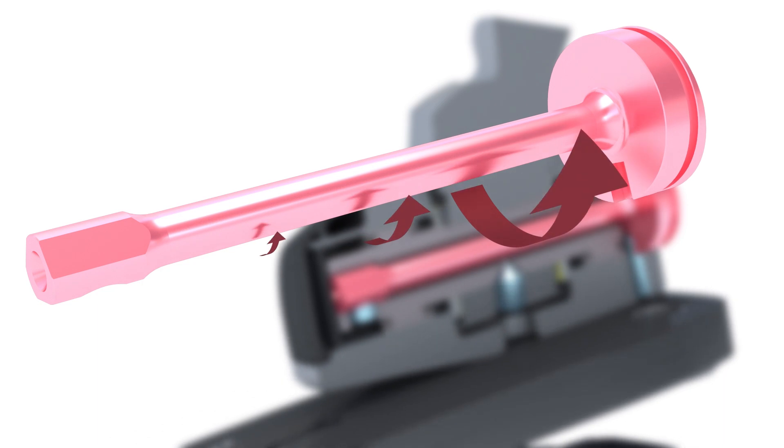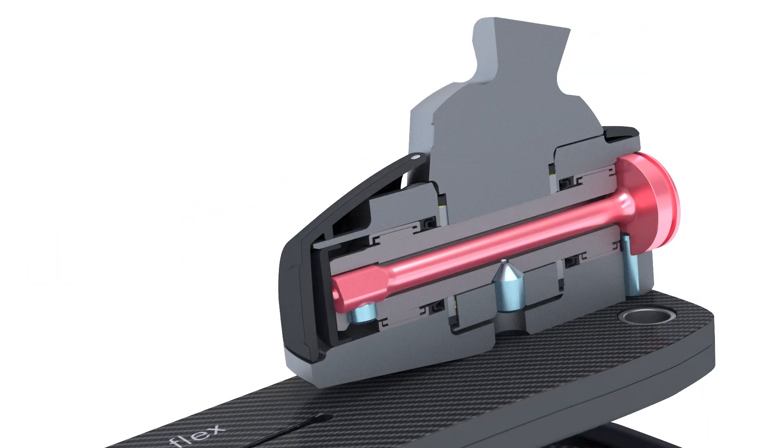The stiffness does not need to be adjusted since it is appropriate for all sizes and weights.